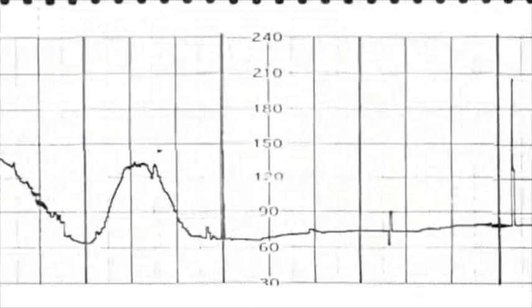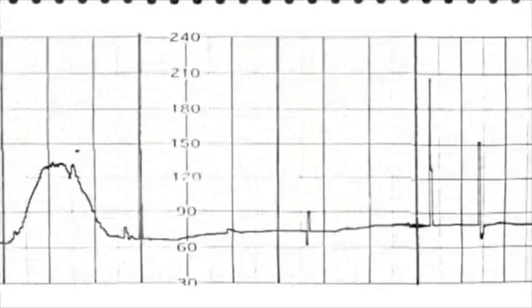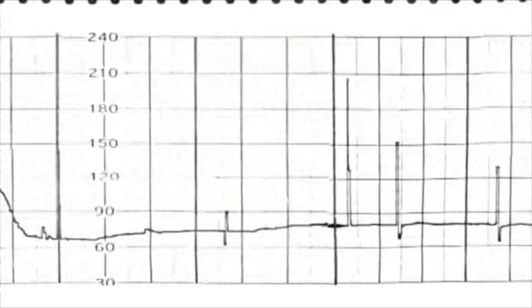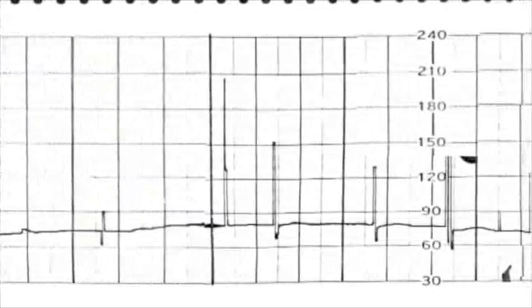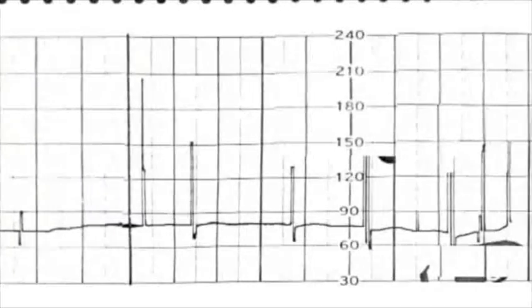Providers should therefore treat transient elevations of the fetal heart rate during bradycardic events with extreme skepticism and continue preparations for emergent delivery should the elevation in fetal heart rate be brief.